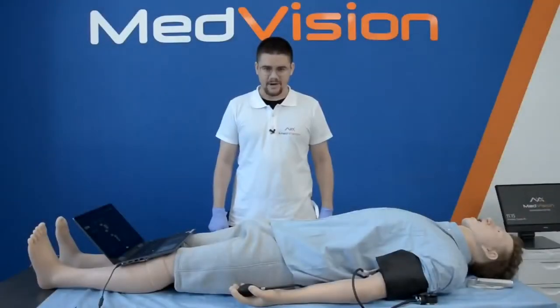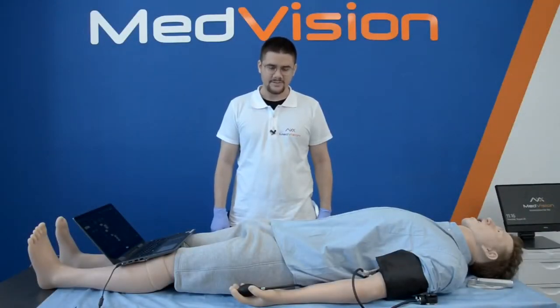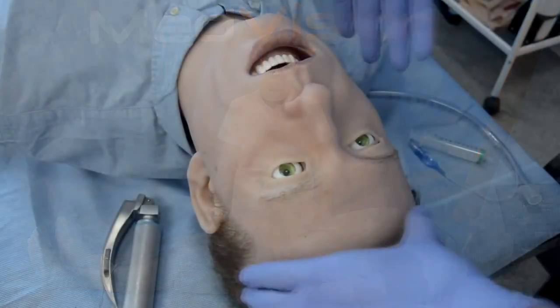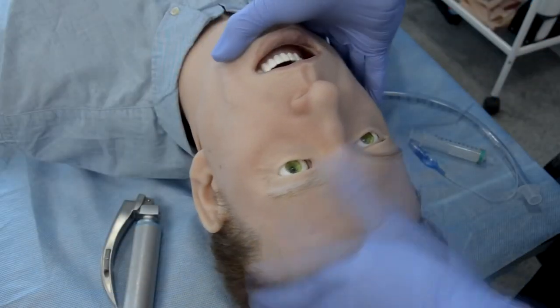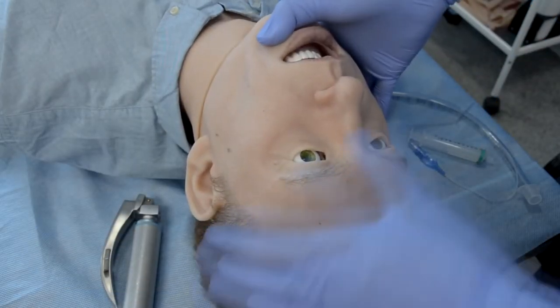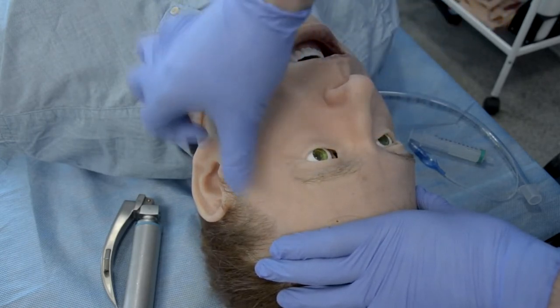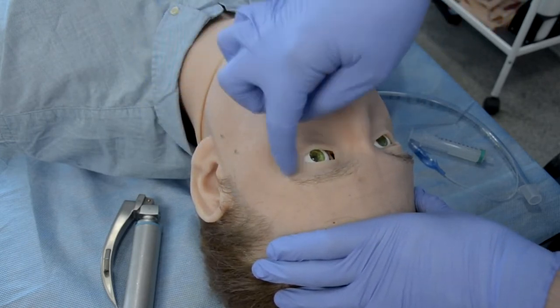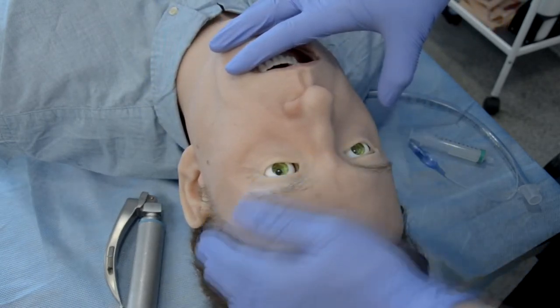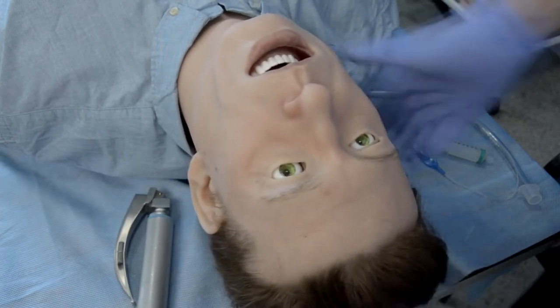Let's begin our demo of Leonardo High Fidelity simulator in our classic approach from head to toes. Starting with the head, you can see we have a highly realistic head — you can see pigmentation, pores, blemishes, wrinkles, eyebrows, hair, so everything looks very realistic.